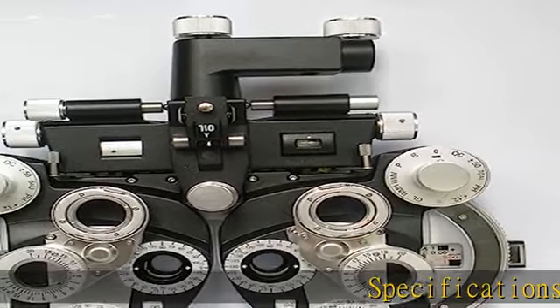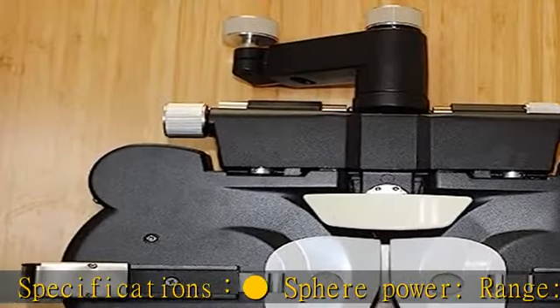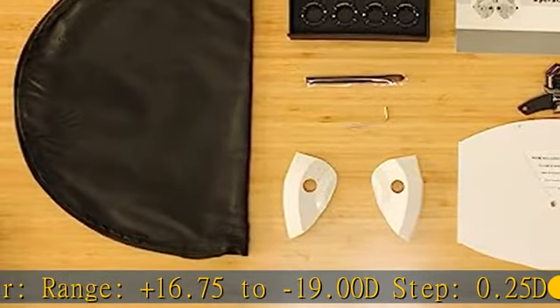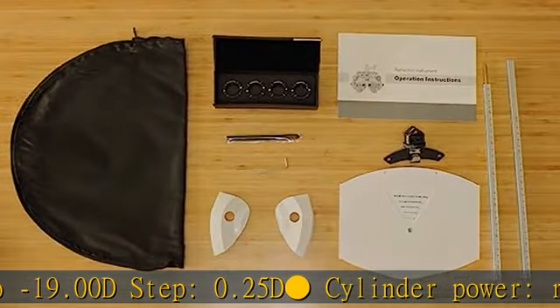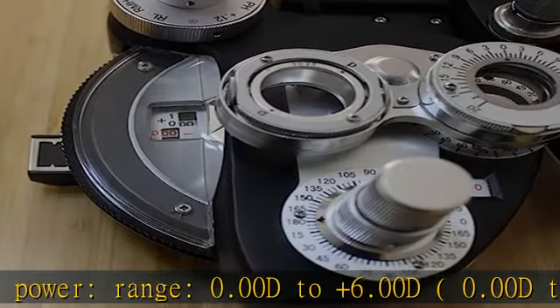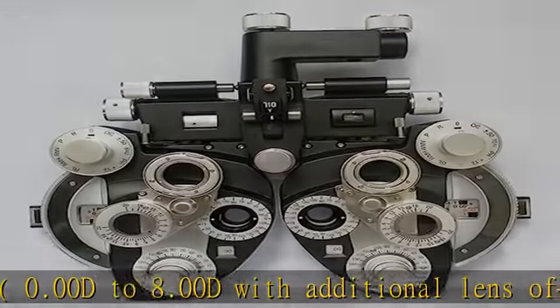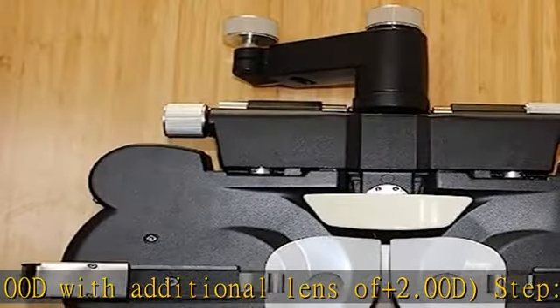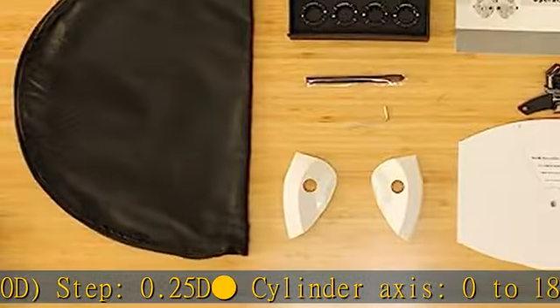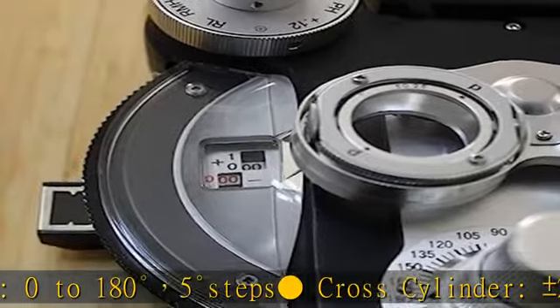Specifications: sphere power range plus 16.75 to minus 19.00 D, step 0.25 D. Cylinder power range 0.00 D to plus 6.00 D, or 0.00 D to plus 8.00 D with additional lens of plus 2.00 D, step 0.25 D. Cylinder axis 0 to 180 degrees in 5 degree steps. Cross-cylinder plus or minus 0.25 diopters; cross-cylinder lens plus or minus 0.25 D.